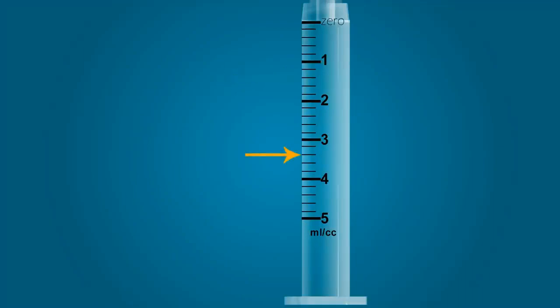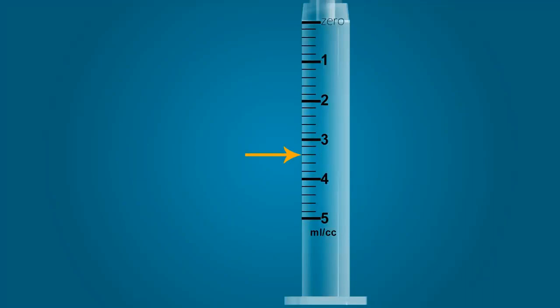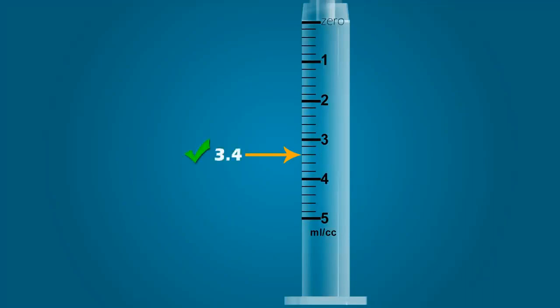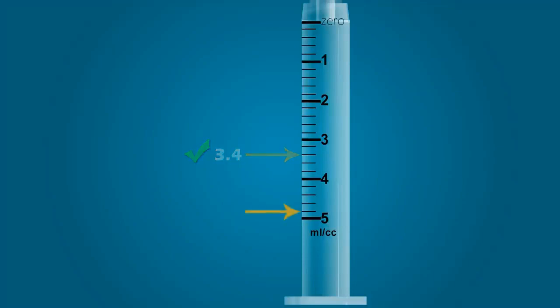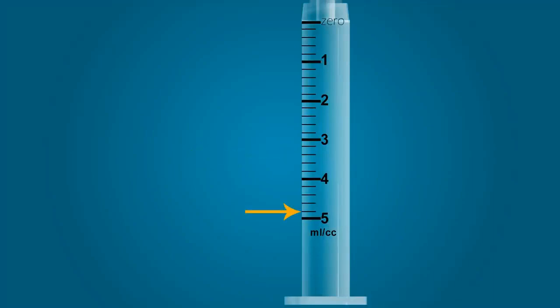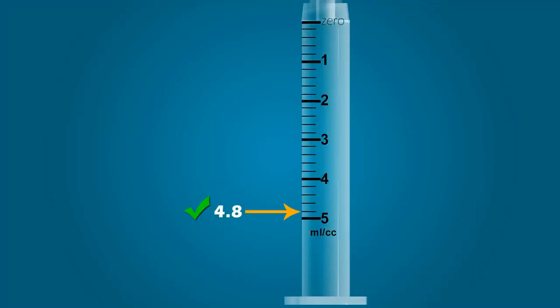So how much does this line represent? If you stated 3.4 milliliters, you are correct. How about this line? If you stated 4.8, you are correct.